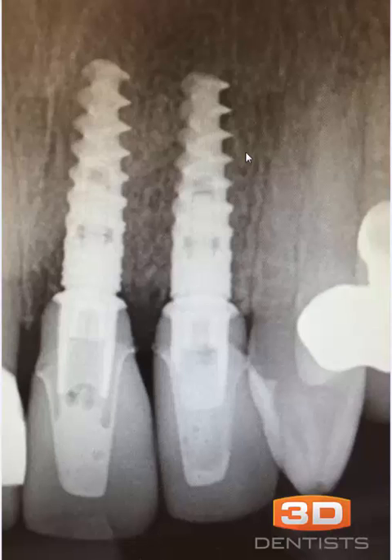Specifically, I want to look at the use of the tie base that's often used with the CEREC system on narrow platform implants. Here's a wonderful case — unbelievably well done, great implant placement, so many things are well done. This is not a conviction of this particular case, but more about sharing what I've seen from my own experience. As a general blanket statement, I'm not a fan of using the Sirona tie base on narrow platform implants. Let me show you why.